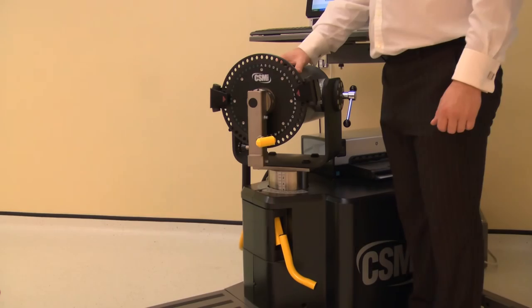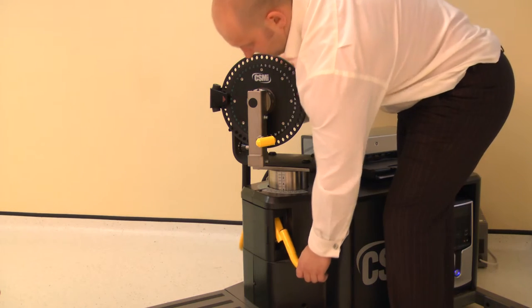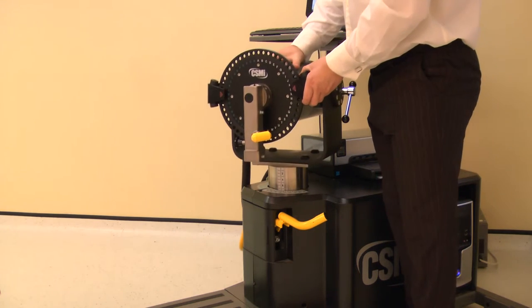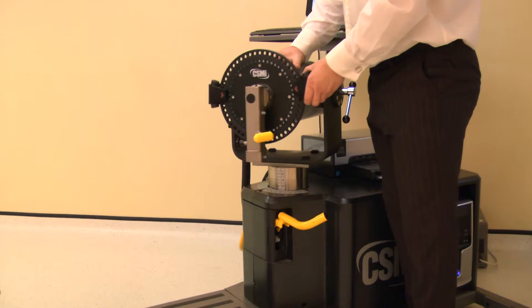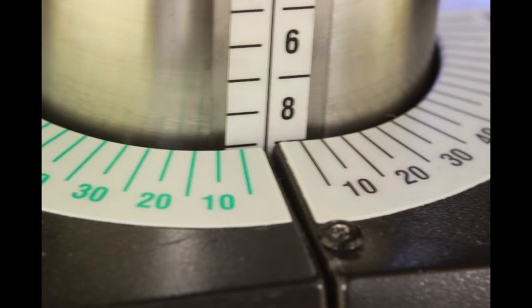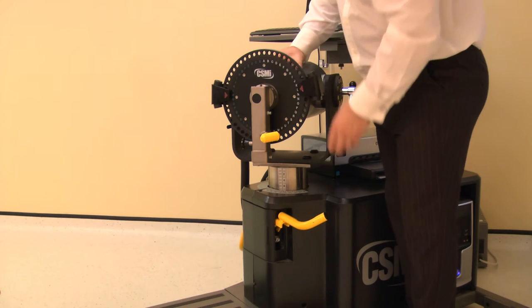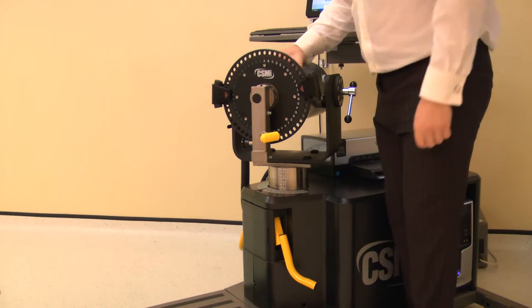The dynamometer height and rotation are adjusted together. Lift the locking handle to release. Rotate the dynamometer to 0 degrees whilst also adjusting the height to 9. Ensure both locking handles are pushed down to secure.